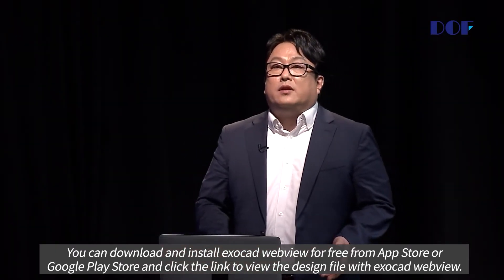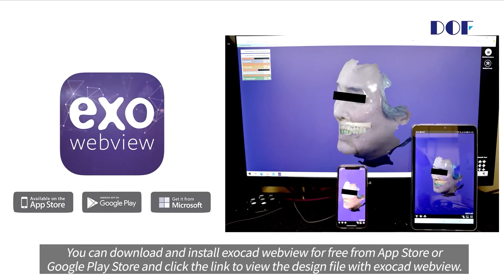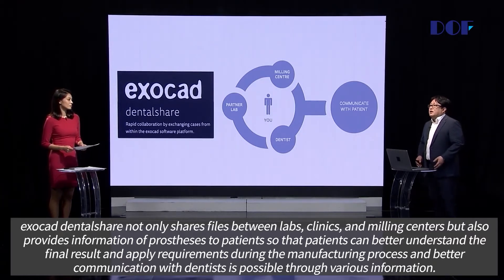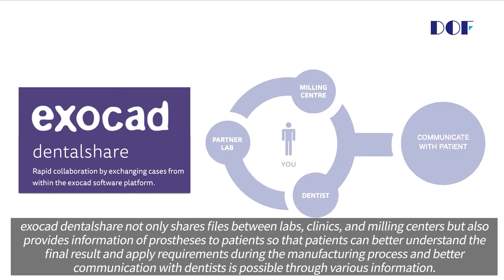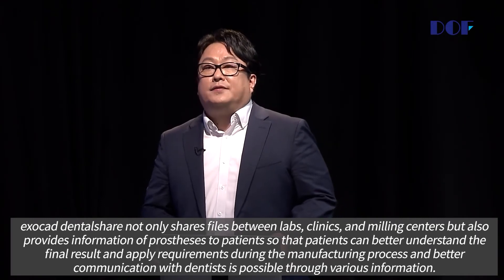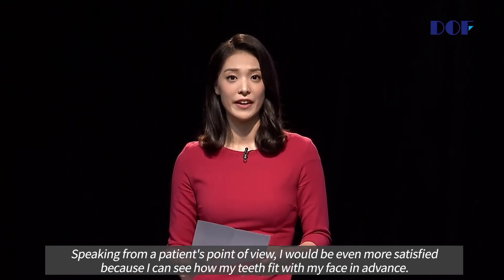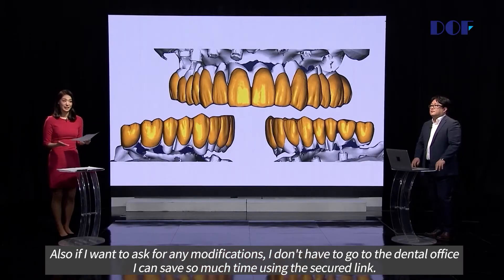You can download and install the Exocad webview for free from the App Store or Google Play Store, click the link, and view the design file with Exocad webview. Exocad dental share not only shares files between lab, clinic, and milling center, but also provides information about the prosthesis to patients so they can better understand the final result and apply requirements during the manufacturing process. Better communication with dentists is possible through various information. From a patient's point of view, you can see how your teeth fit with your face in advance, and if you want modifications, you don't have to go to the dental office — you can save time using the secured link.